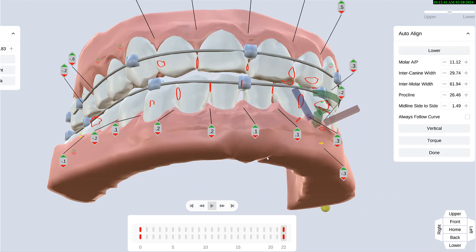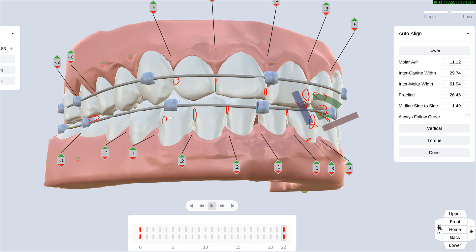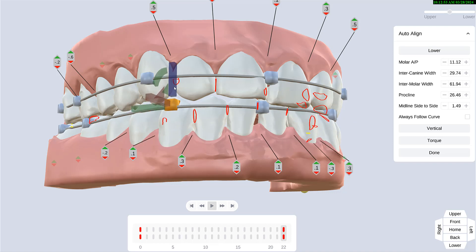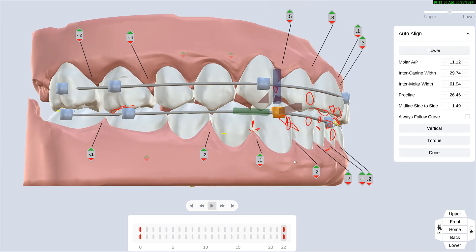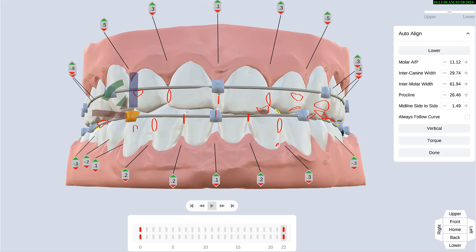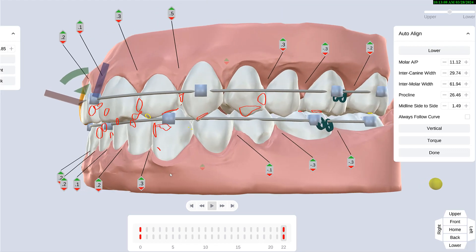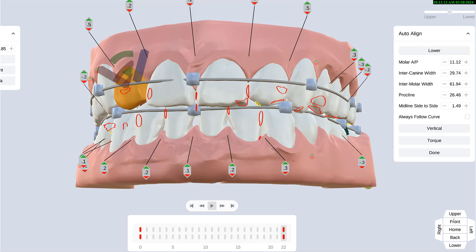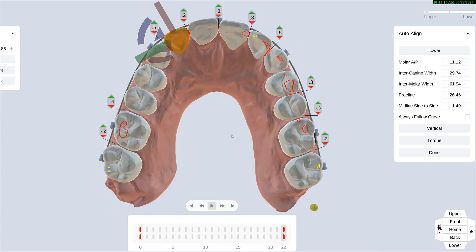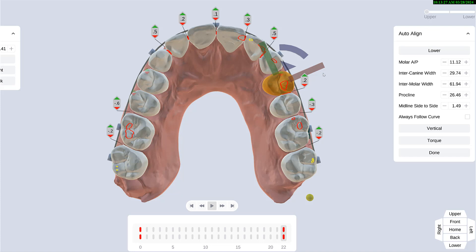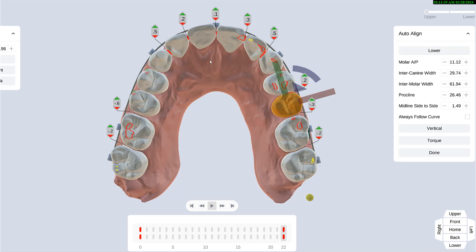You may want to have a look and decide — I can make it really bad, and the computer will let me do it. I can also make it a little bit better and get a good occlusion. It's just a preliminary alignment that the computer gives you, which you can really modify as you want. You can view the upper arch only, look at the occlusion, and tweak it — maybe go a little bit more here — to help the computer do a better job of aligning the occlusion.